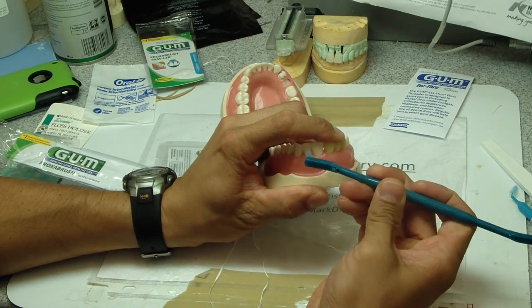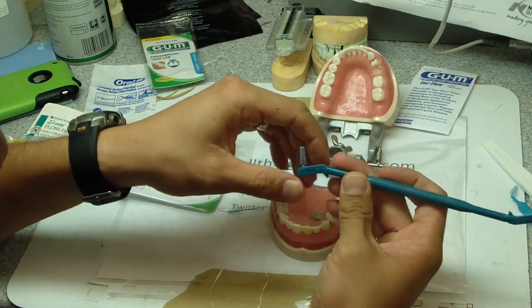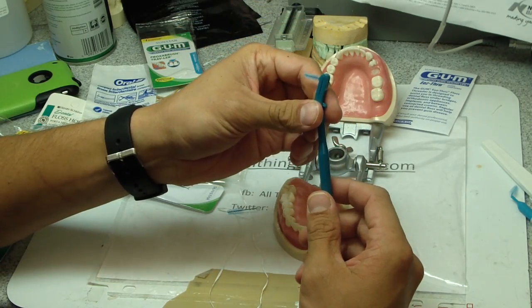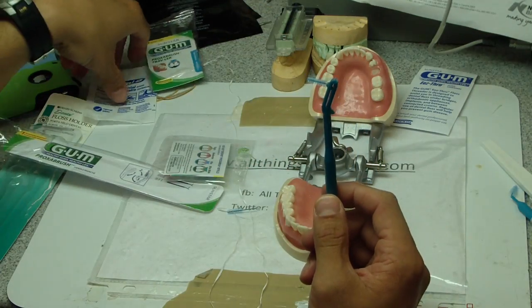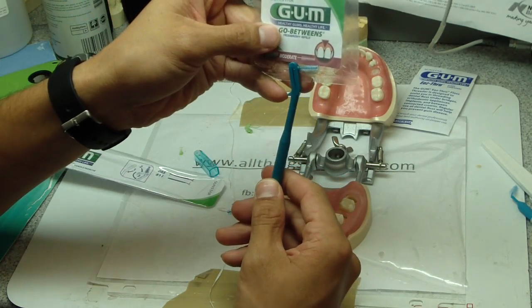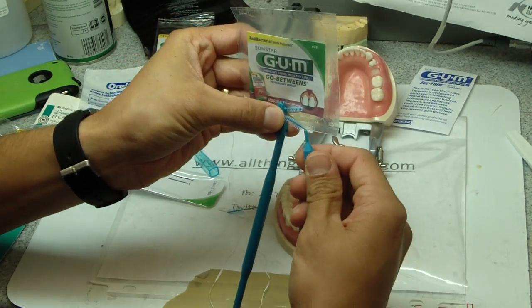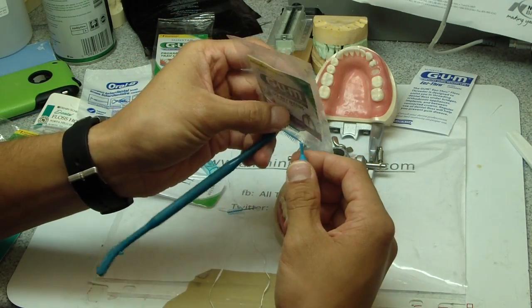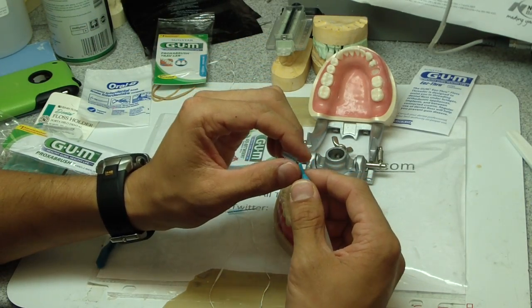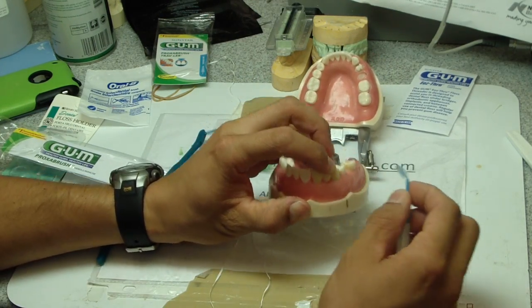You can use this if you've got bigger gaps between other teeth. Probably one percent of the population likes flossing, so let's be realistic — it's another way of flossing in a sense. The key thing is that you can buy different sizes of proxy brushes. I would get fine rather than moderate — if you can find the fine versions. The moderate ones are like sticking a super big pipe cleaner through your teeth. The fine ones have a much narrower wire and are a lot easier to get into.